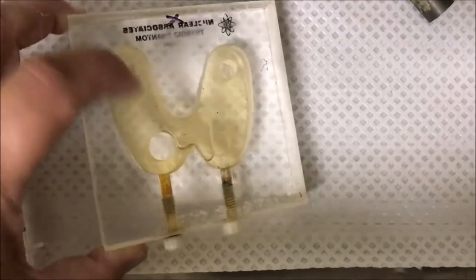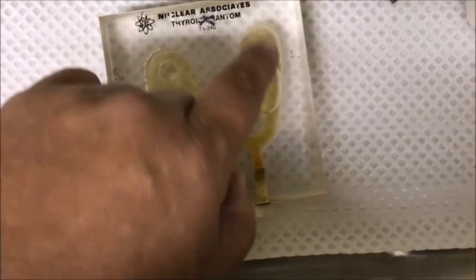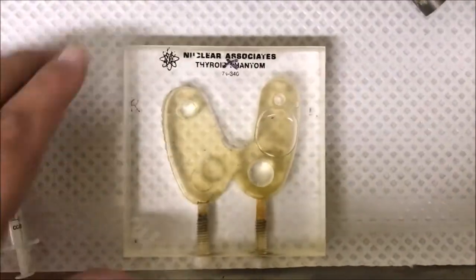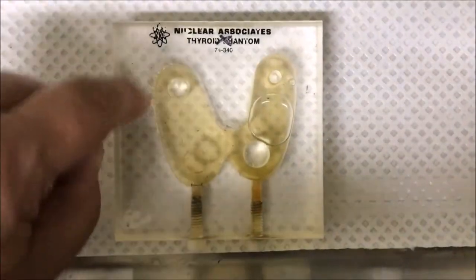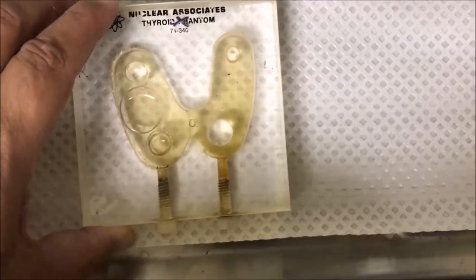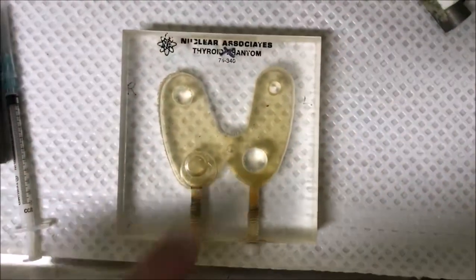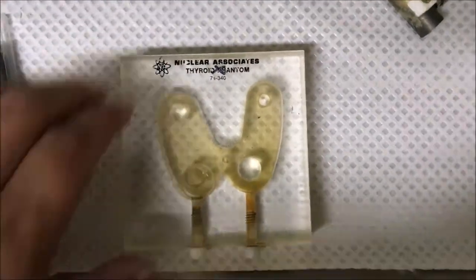On this side — the full thickness side — you get double the concentration. On this side, because there's a layer of Perspex bridging through it, you'll get half the concentration, with the exception of that hot nodule.